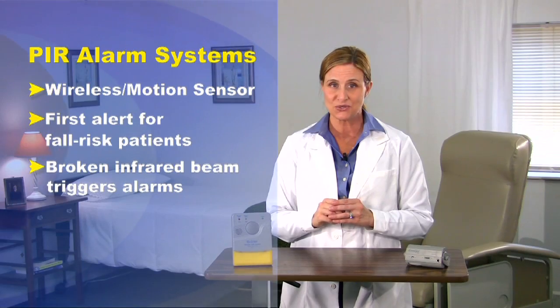This presentation takes a closer look at System 3 and explains the benefits specific to the system, its components, setup instructions, and how to use it.